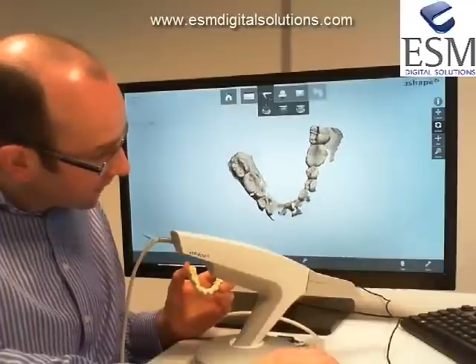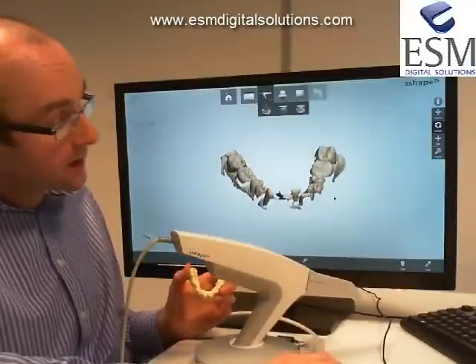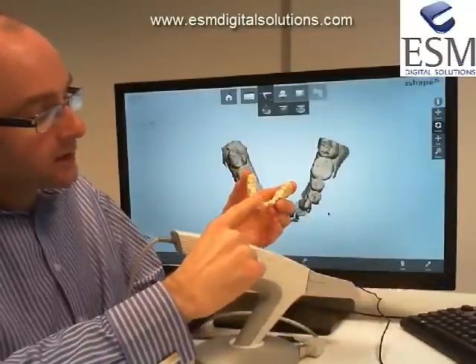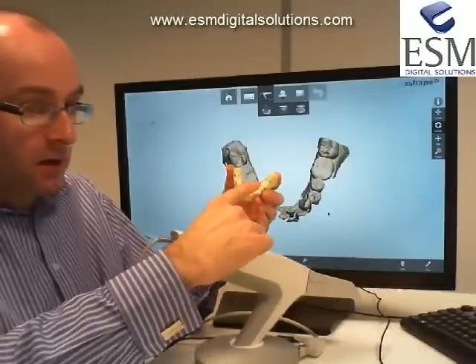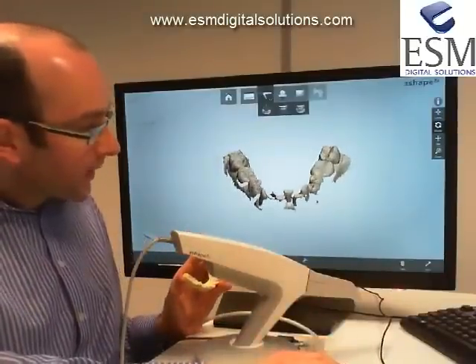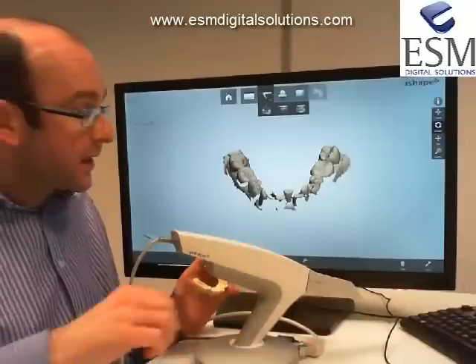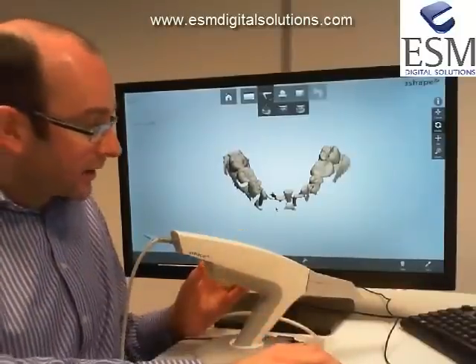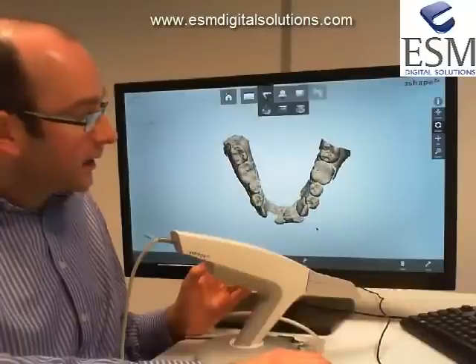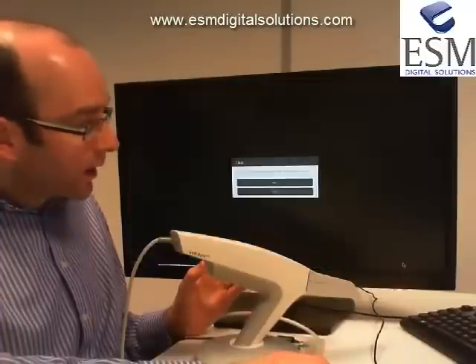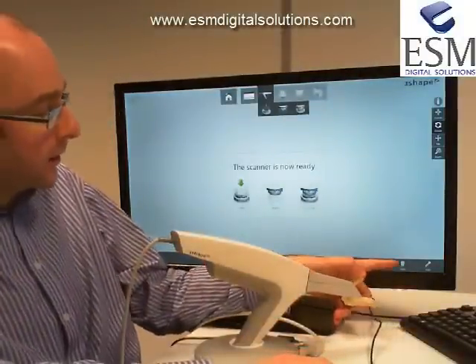As I rotate, we've captured some lingual and buccal detail, but look at the incisal area - we haven't captured a whole lot of labial detail there. When I did the scan and came around to the anterior region, I just did one sweep, whereas I should have gone back and rocked forward and back. This lack of detail is considered a weakness - the risk is that additional detail won't be stitched onto the scan appropriately. In the interest of getting a good scan, I'm going to delete that scan using the clear button - the little trash can icon - and scan again.